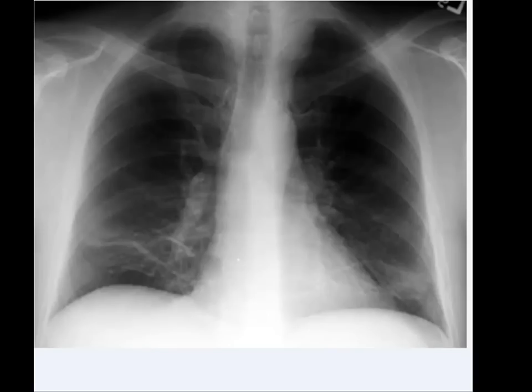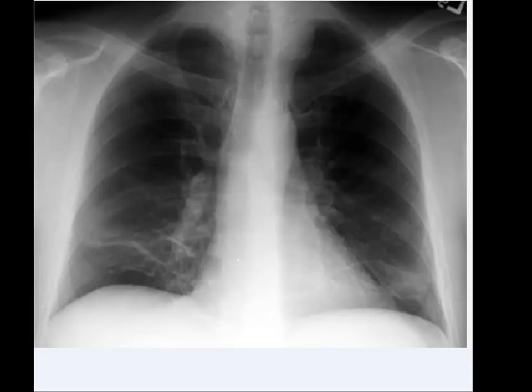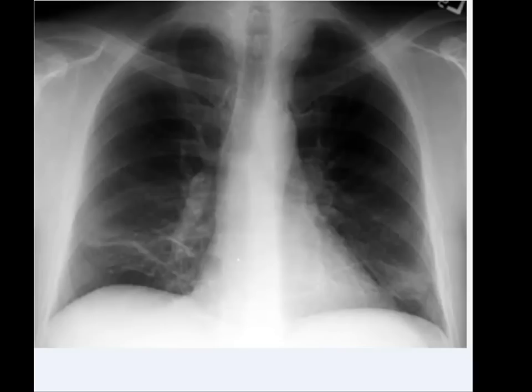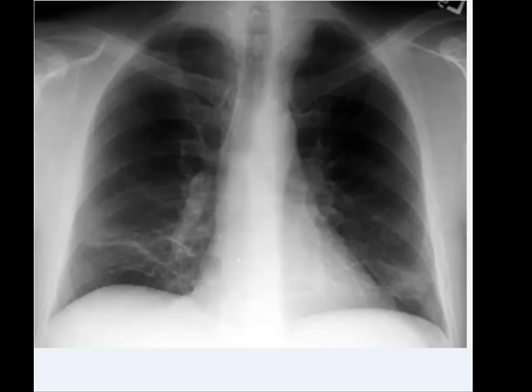Hello everybody. We have seen several examples of lung collapses in which one whole lung collapses, and several examples of lobar collapses in which one lobe of lung collapses. We have discussed pathophysiology behind lobar collapses in several videos, and we have seen at least one example of segmental atelectasis in which segments of a lobe of lung collapse rather than the whole lobe.